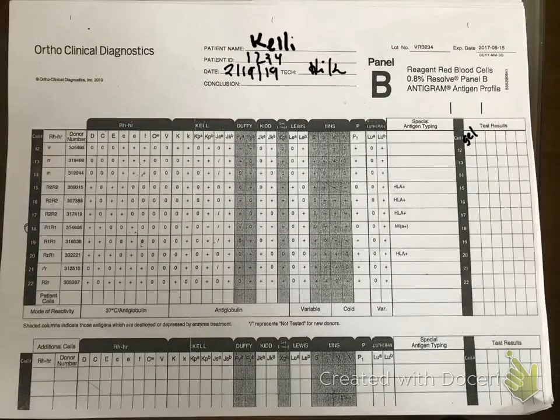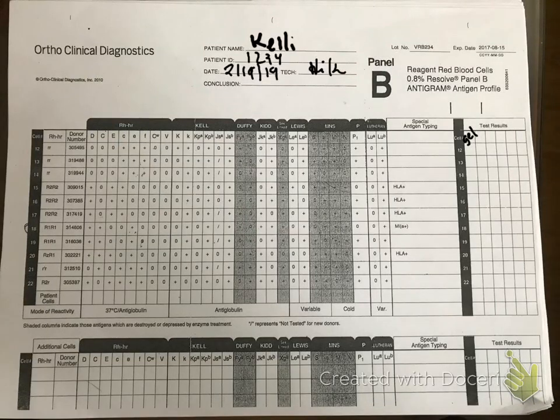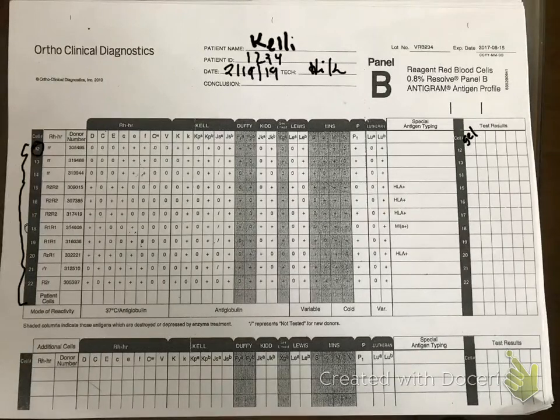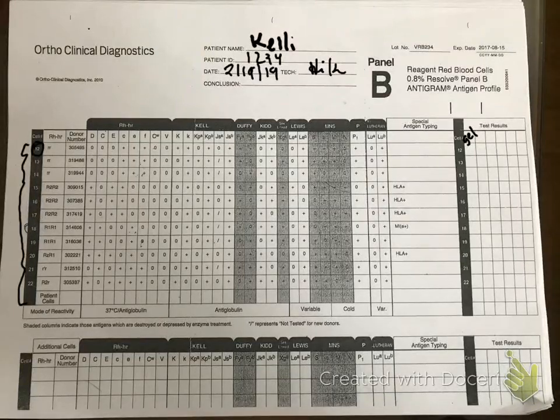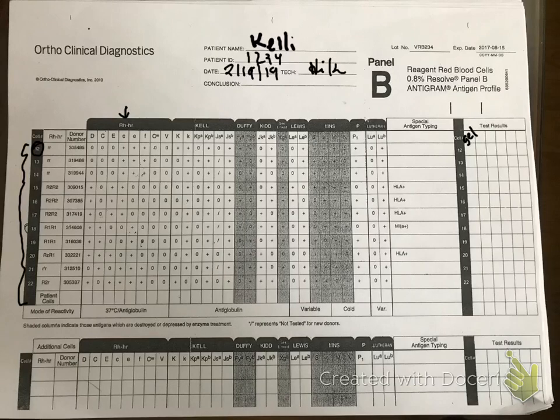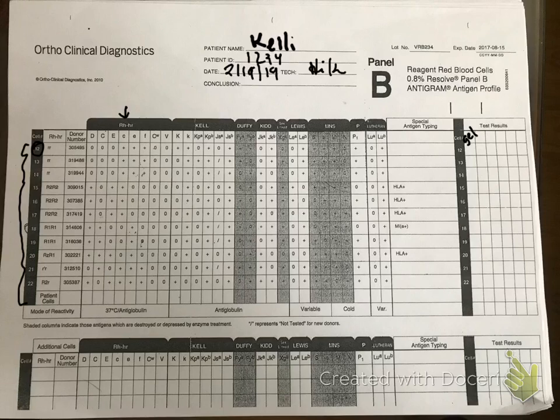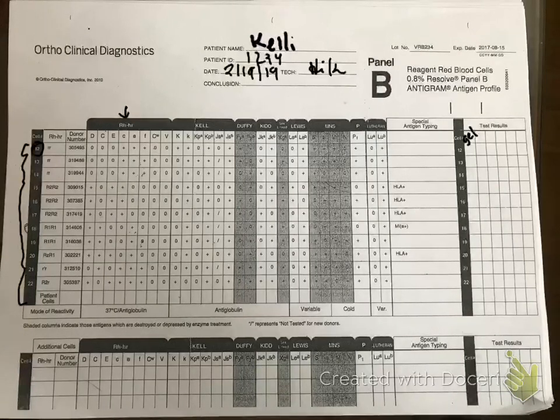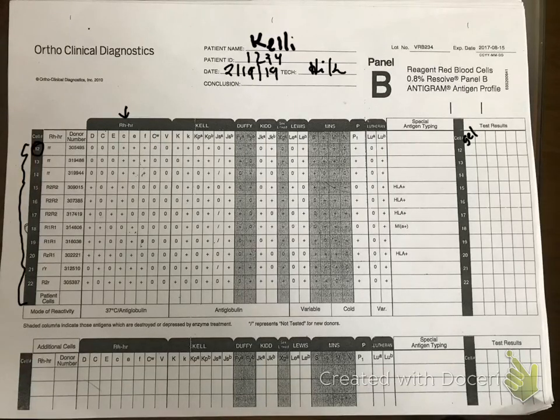I'll talk you through the identification part after you set up the panel. Each number is a reagent — cell number 12 is a separate reagent bottle. All of the pluses indicate what antigens are on the reagent cell, and the zeros indicate that antigen is not present on the red cell.